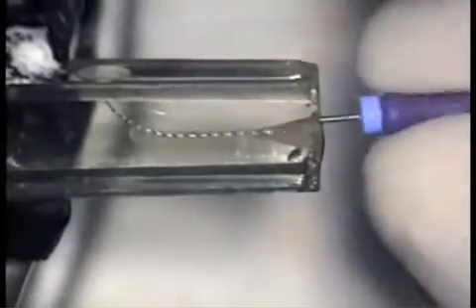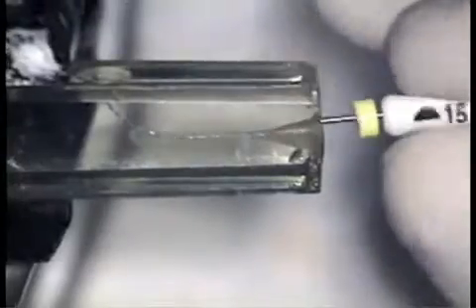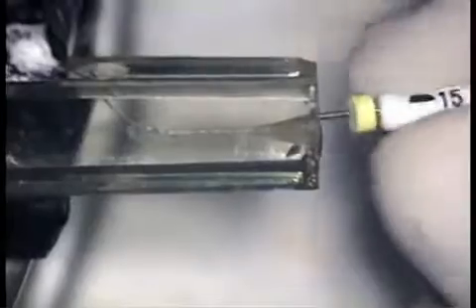Please note the same situation exists when the number 10 reamer is placed. Note the ability to rotate through multiple 360-degree arcs, a direct result of the minimum amount of apical and torsional resistance encountered. The number 15 relieved reamer encounters somewhat more resistance, both torsional and apical. As a result, the canal must be shaped for a significantly longer time using much shorter arcs of rotation. Eventually, we are able to do repetitive 360-degree arcs of rotation without increasing the force applied to the instrument.